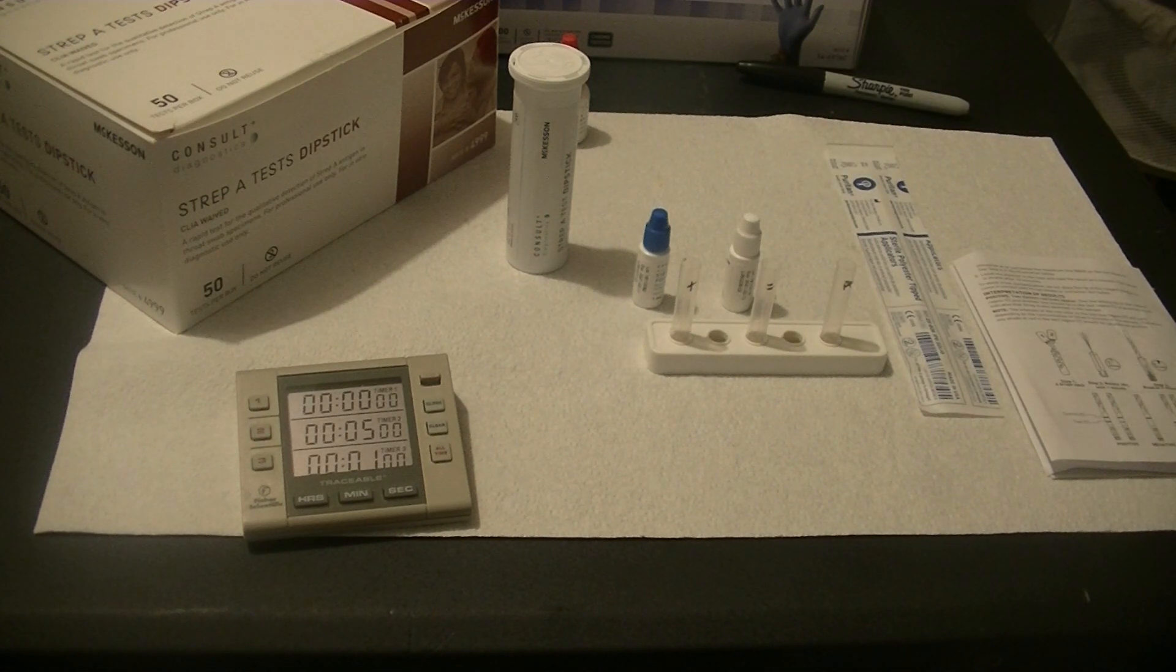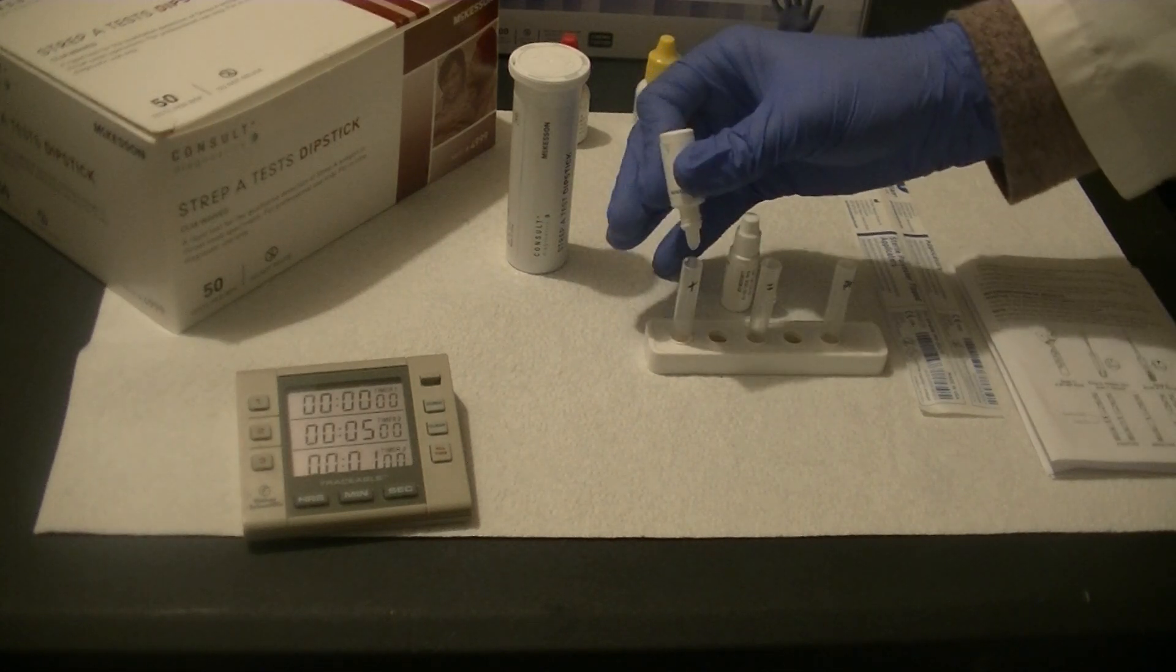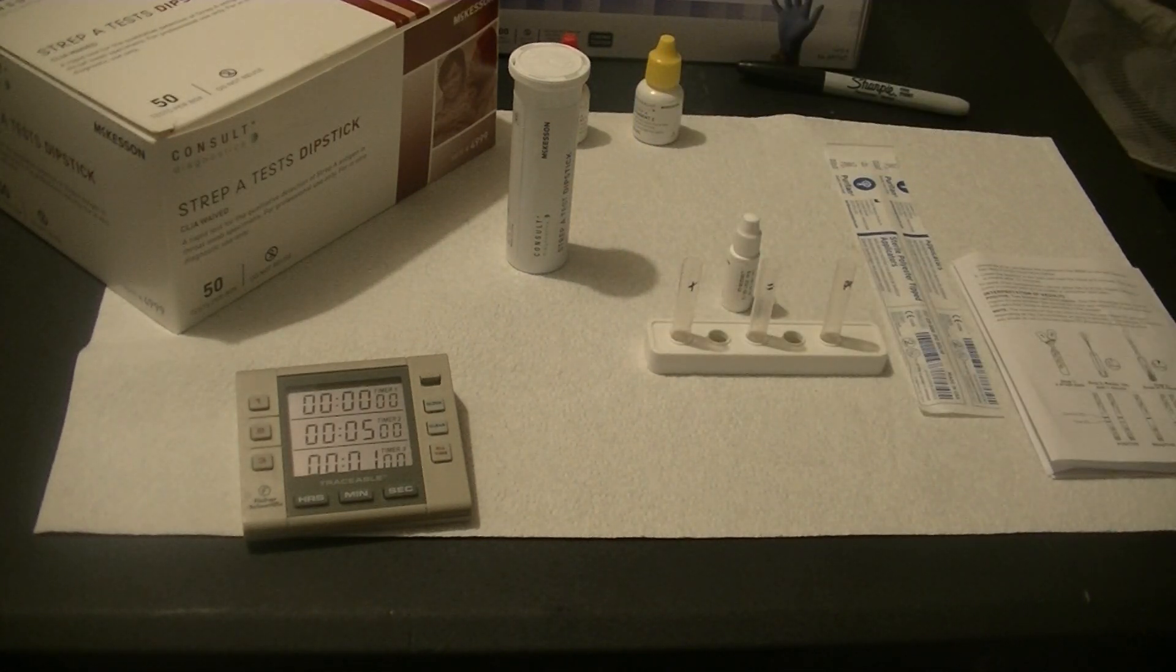Since I'm using an external positive control, this one is easy. I'm just going to add a drop of control. Same with negative control. I'm going to add a drop of control.